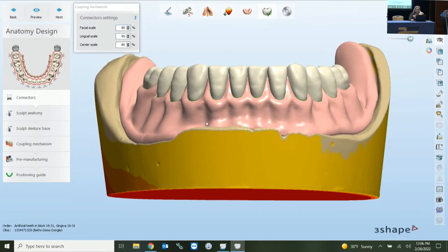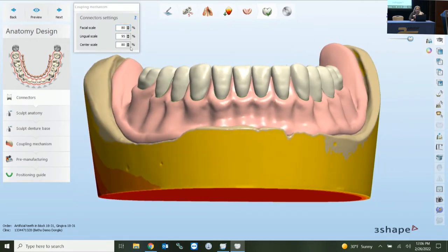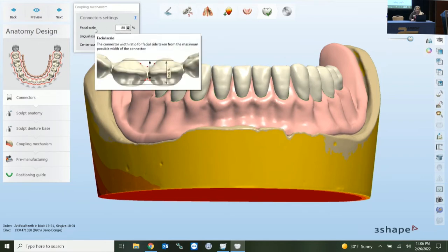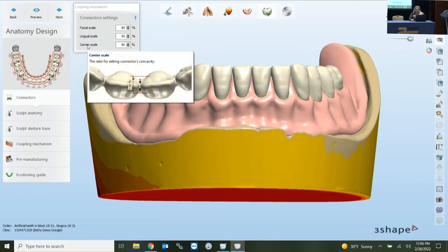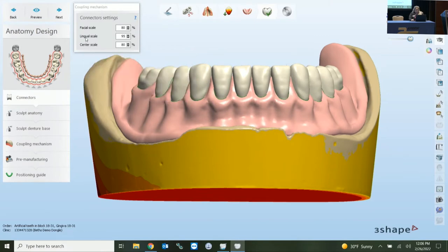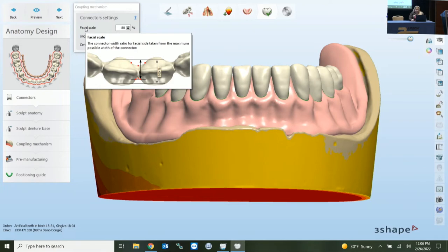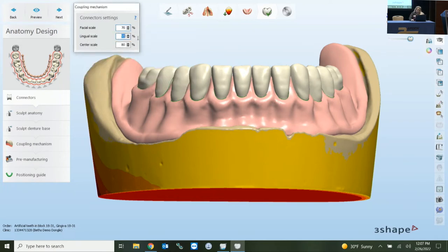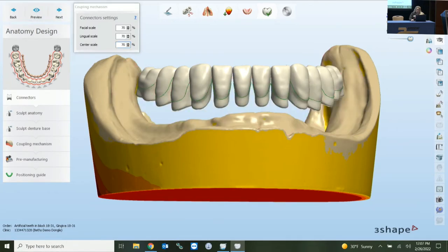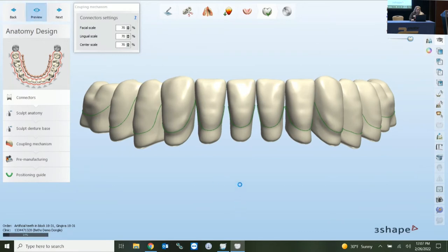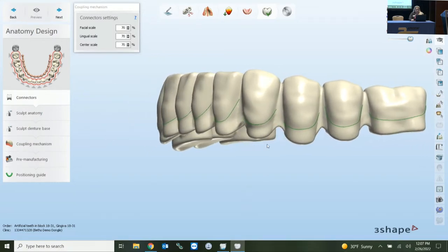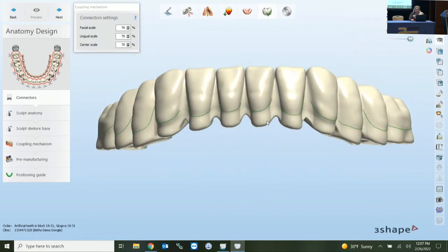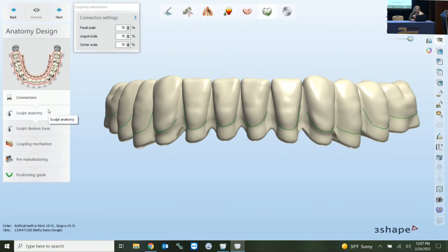Now we're on the connector phase. The connector phase connects the teeth together. You can see a facial scale, a lingual scale, and a center scale with percentages. In the visual, it's showing you what that percentage change will do. You can only lower the percentage to a certain point because your teeth need to stay connected together. At 70%, removing the base and scan visually, you can now see they're all connected.